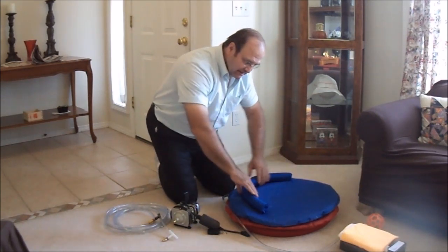This is a normal air pump, which I include with all of my cushion lifts, and it doesn't work any differently than any others. The actual design change is in the hose, which I'll show you in just a minute. This device on the end is the remote control electronic device. So as I plug it into the outlet here, I have remote control over the pump. By pushing this device, I can turn the pump on and off, and you can see the light comes on when the pump is activated. When I push the off switch, the light goes off and the pump goes off.